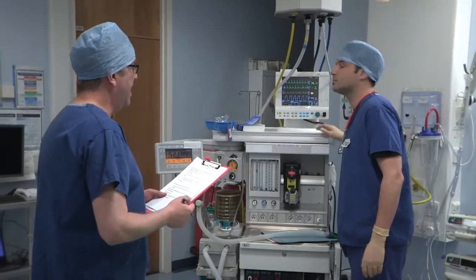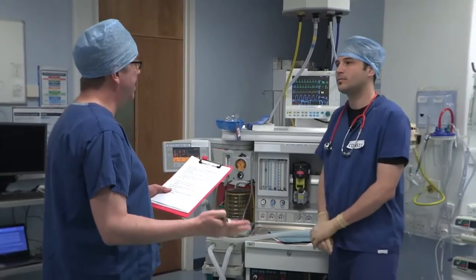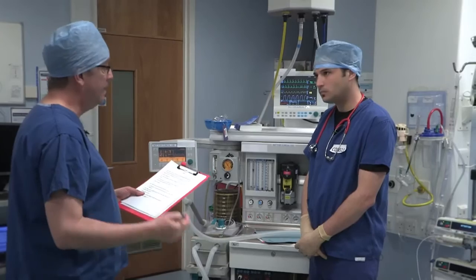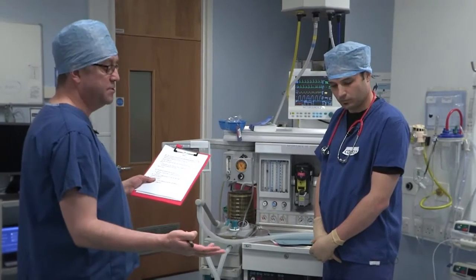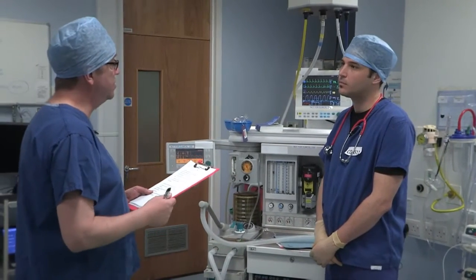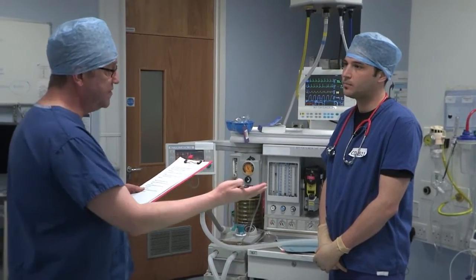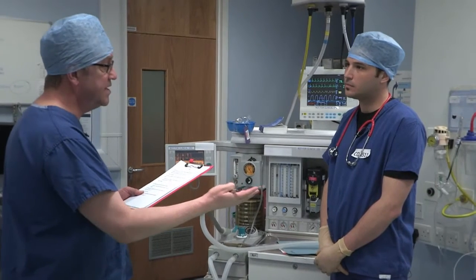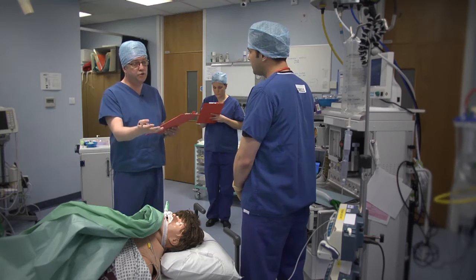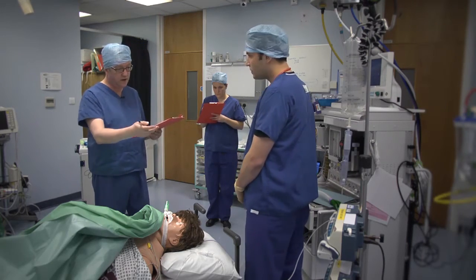The scenario now is that you are in the middle of an abdominal operation. Things seem to be going well, but suddenly you notice that one of the devices is alarming. Could you please now resolve the alarm?